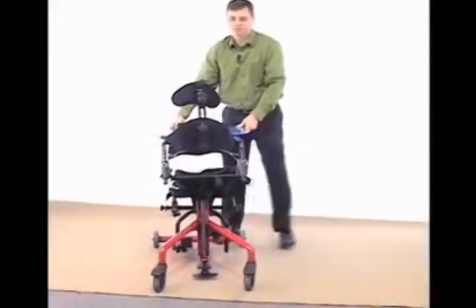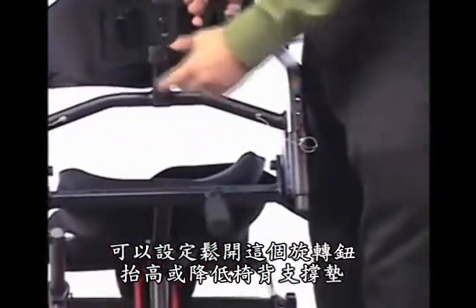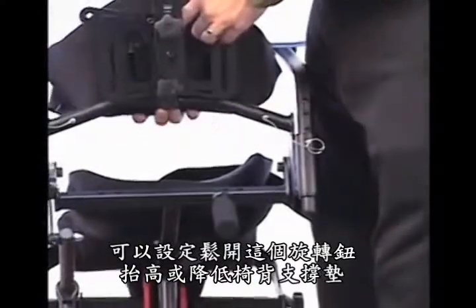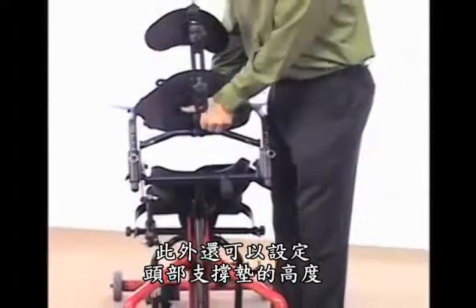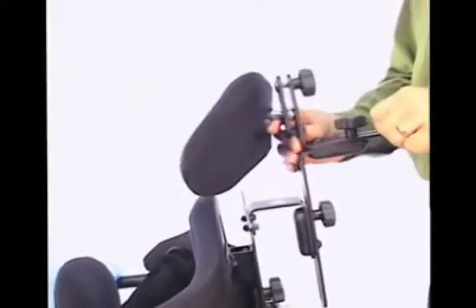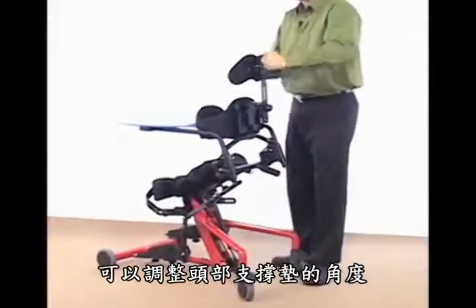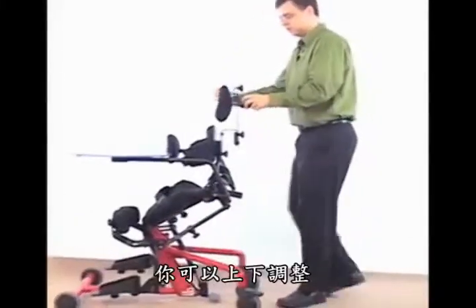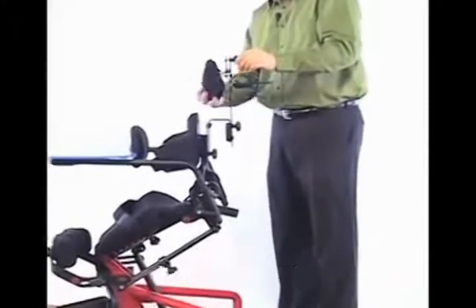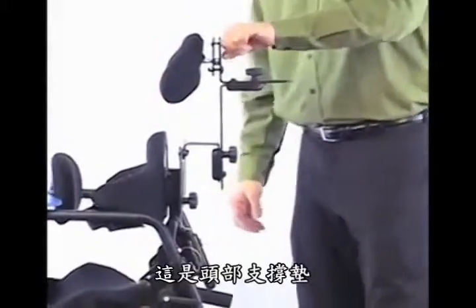Now let's take a closer look at setting our back and head adjustments. The height of your thoracic support or back can be set by loosening this knob and raising or lowering the back support. In addition, there's support for head support height and head support depth. Finally, the knob on top of the unit allows for angle adjustment of the head support — you can adjust up and down, or it's on a ball swivel, so any desired adjustment can be made for the head support.